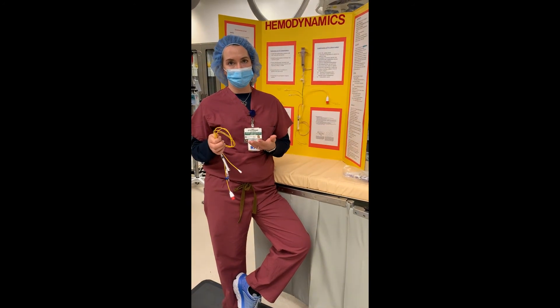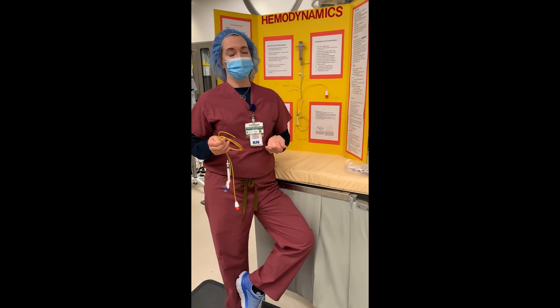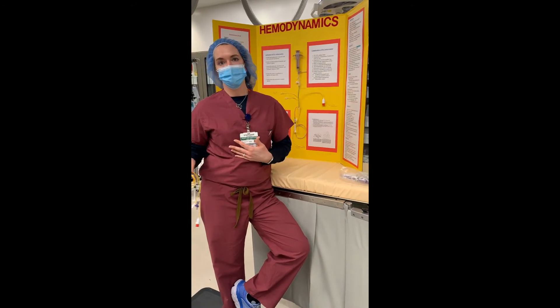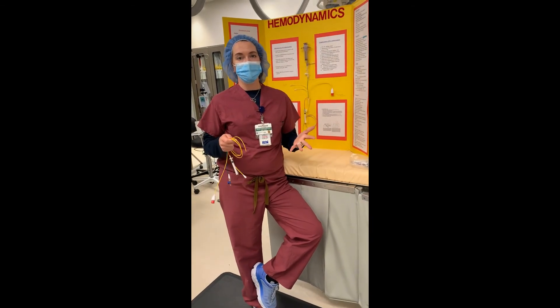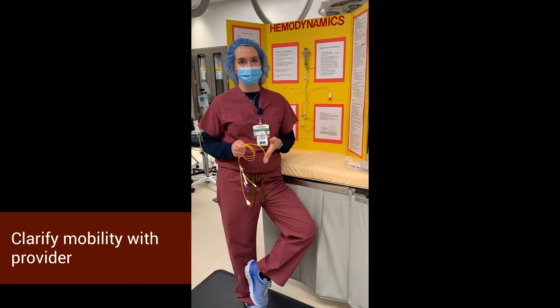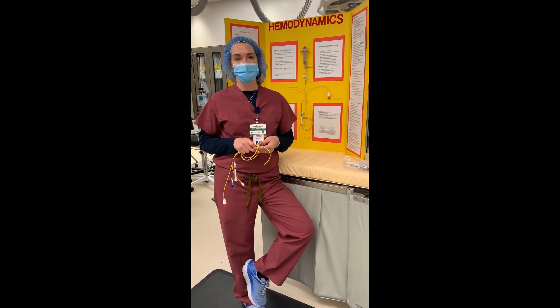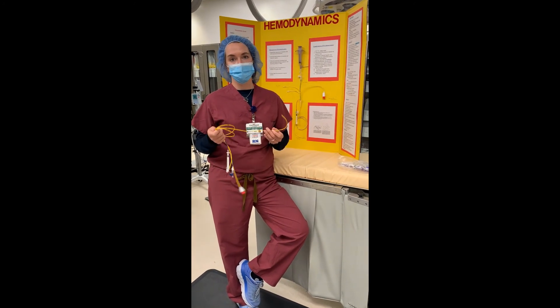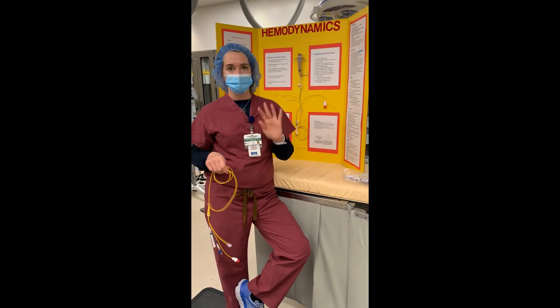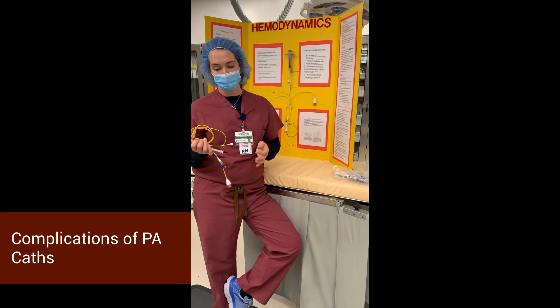Also think about your patients — a lot of them are ambulatory. They have heart failure, might be on milrinone, might be waiting for a heart transplant or an LVAD. These people walk and move; you don't want to confine them to bed. Have a discussion with your physician about whether you're getting this person out of bed and ambulating them. It's totally fine to ambulate a patient with a Swan, as long as you check the measurement afterward to make sure it hasn't moved in or out, and confirm your waveforms are appropriate. Get a physician's order for ambulation.